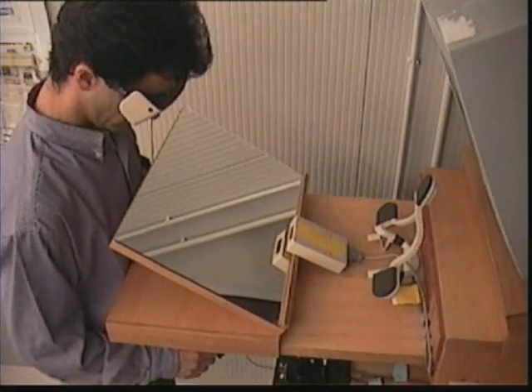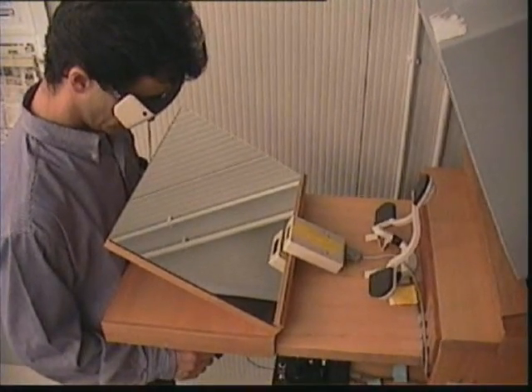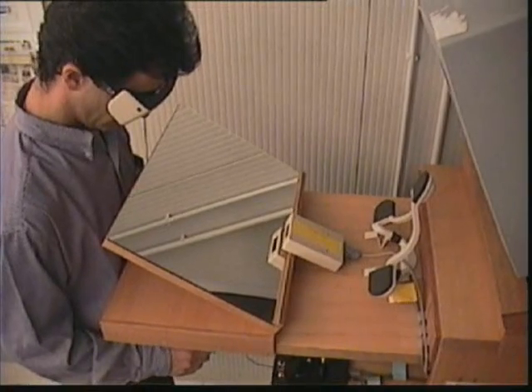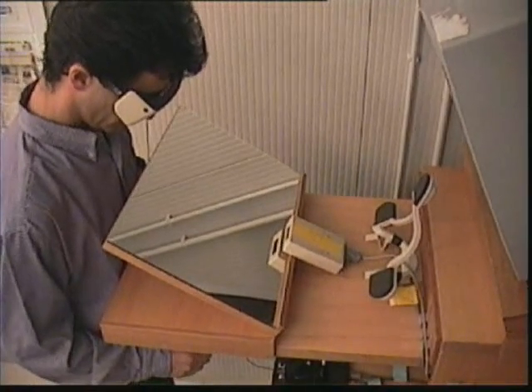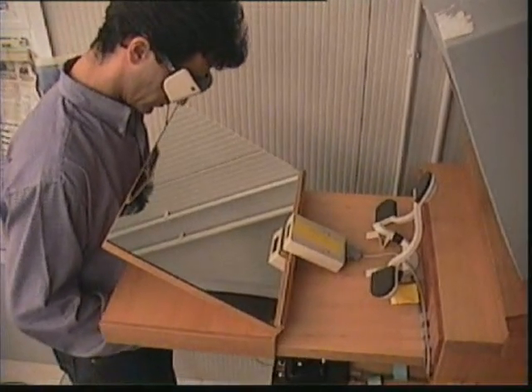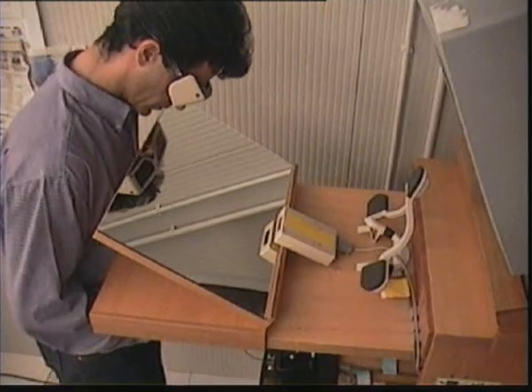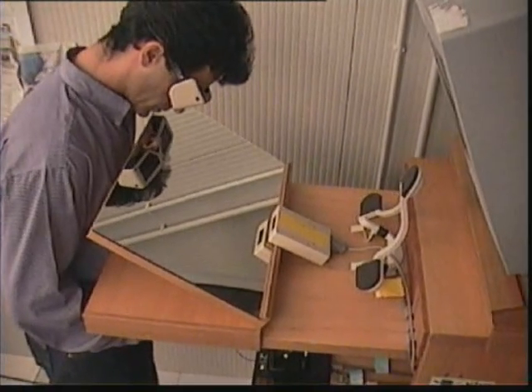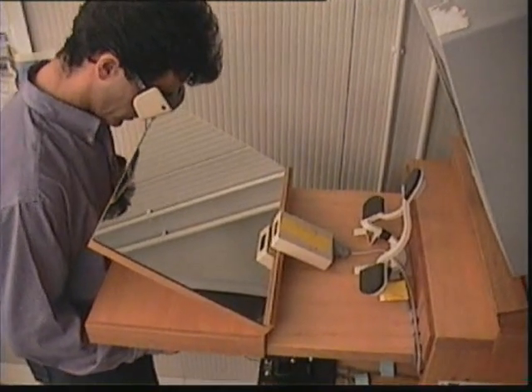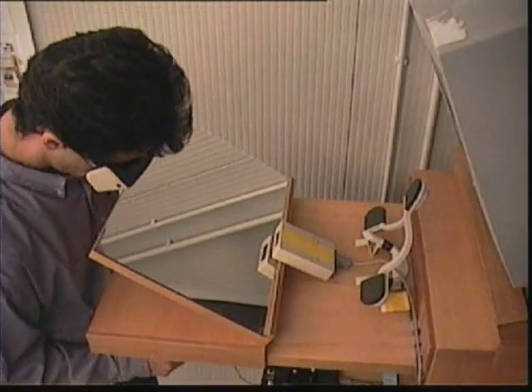To help the surgeon find the optimum insertion point and drive the needle towards the vessel during the puncture, the system allows the surgeon to perceive the patient's position and shape by means of a head-tracked stereoscopic view.